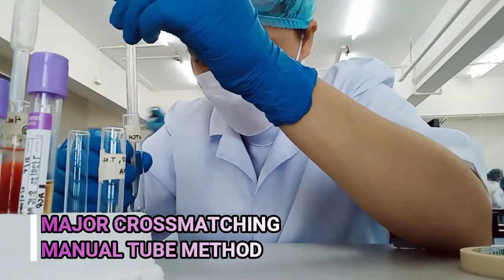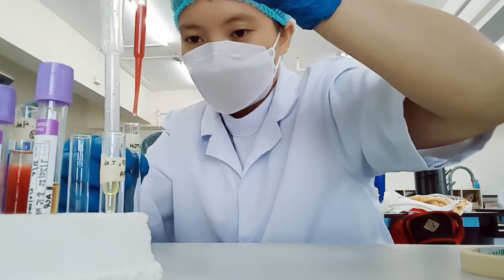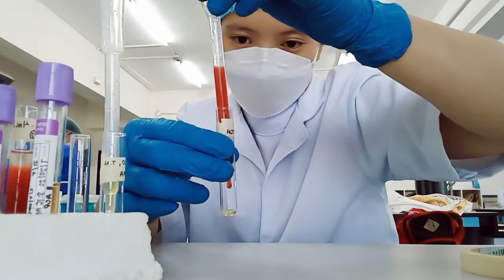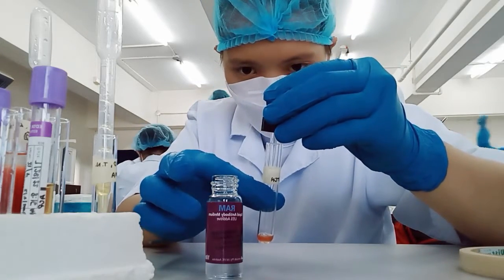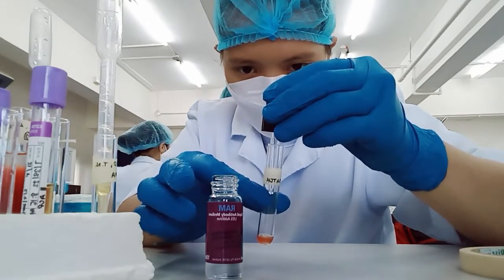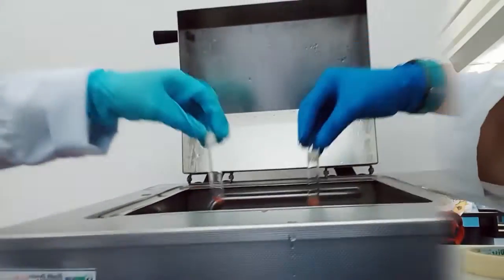Major cross-matching using the manual tube method. Mix 2 drops of patient's plasma with 1 drop of 5% donor's red cell suspension. Then add 2 drops of LISS and mix and incubate at 37 degrees Celsius for 10 to 15 minutes.